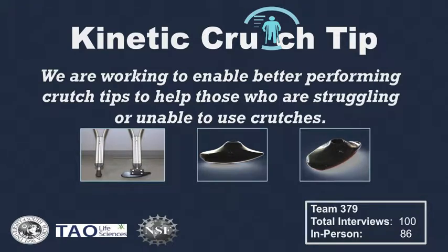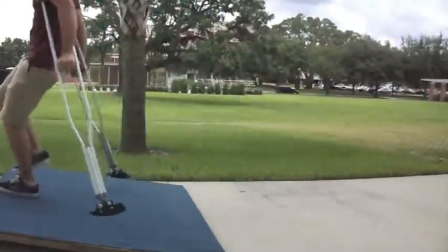A kinetic crutch tip enables better performance to help those who are struggling or unable to use crutches. The crutch tips help crutch users in moving forward and up hills.